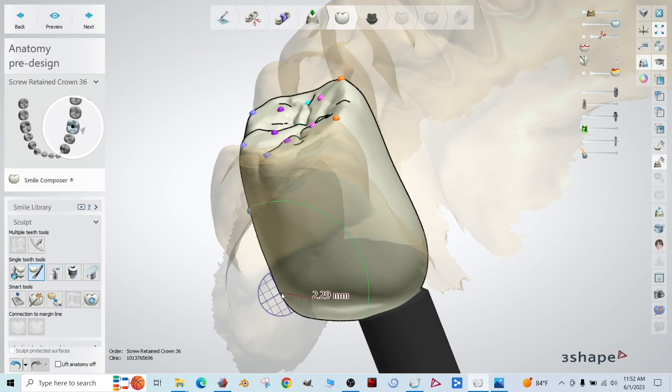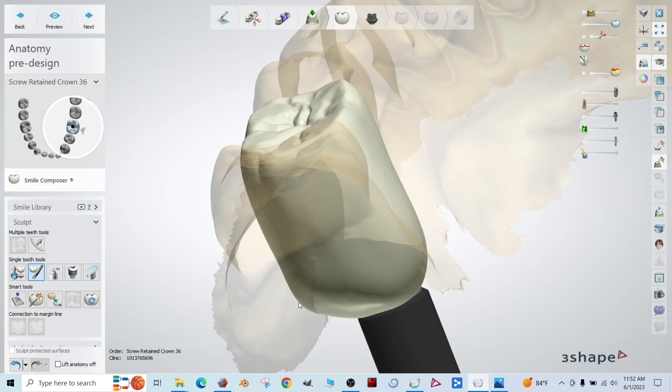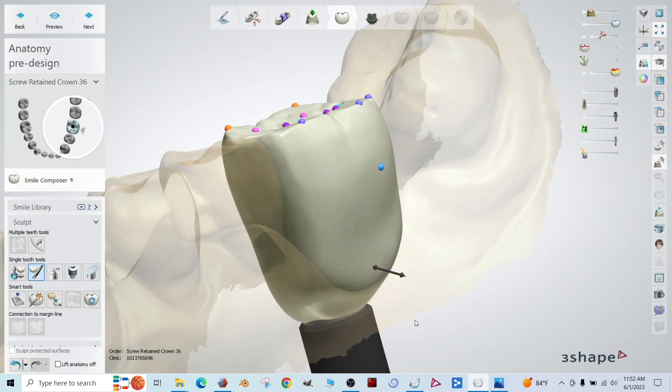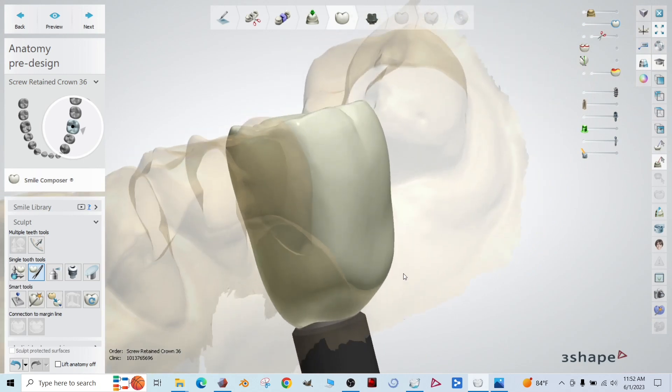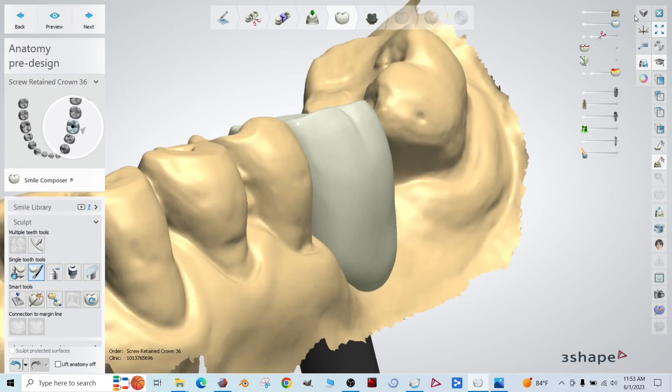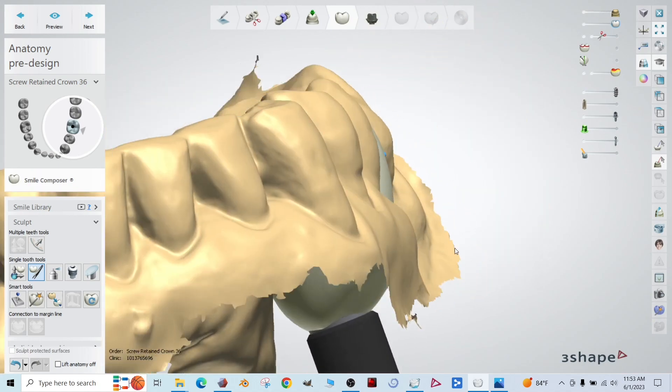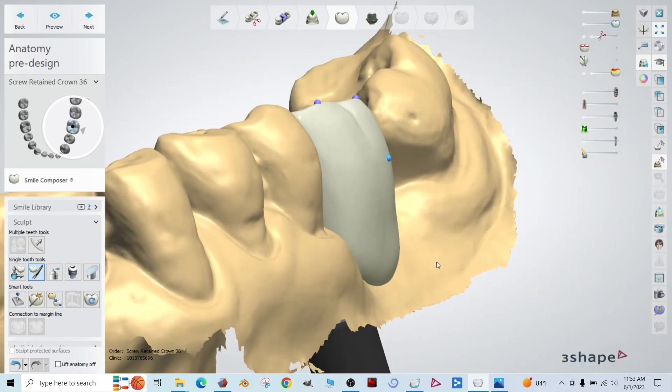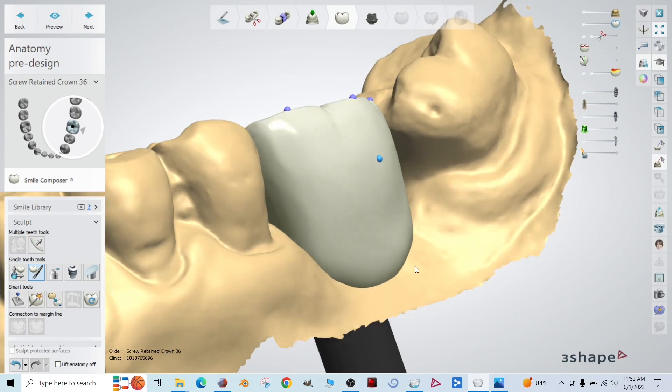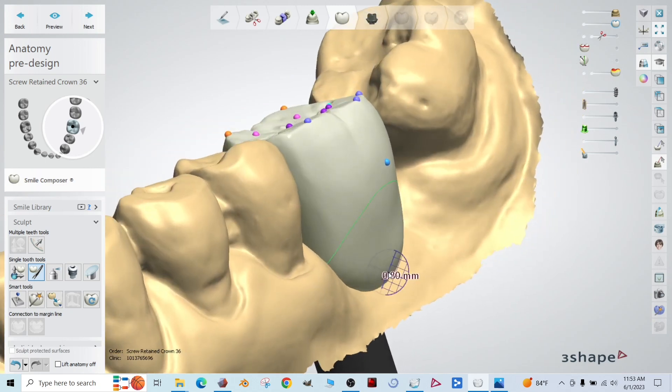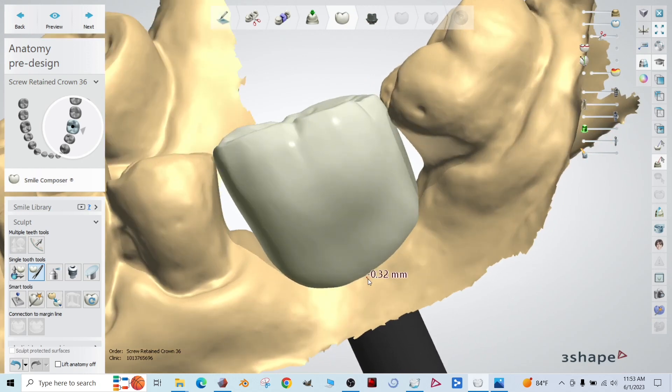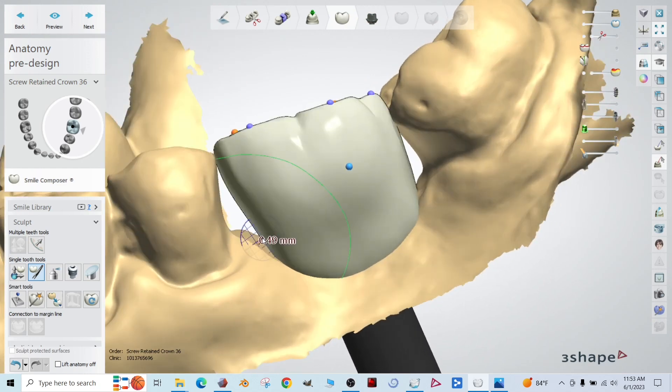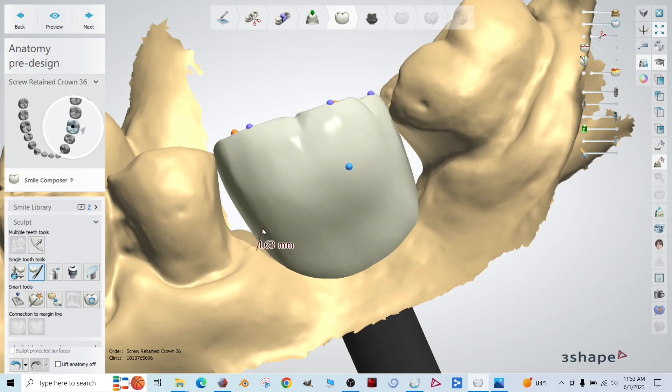Make sure that's a nice big circle. Hold control. Now that arrow appears, you can drag the bottom of that to the implant there. And we're going to widen this area too. This will help when we're designing the emergence profile. I know it looks ugly.